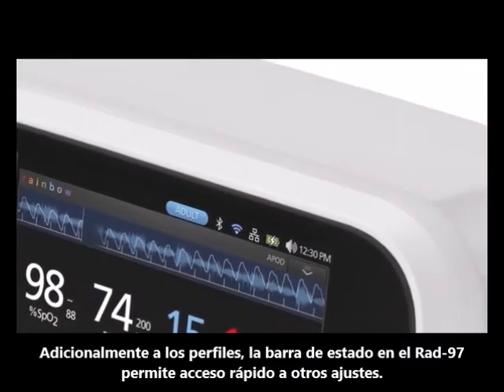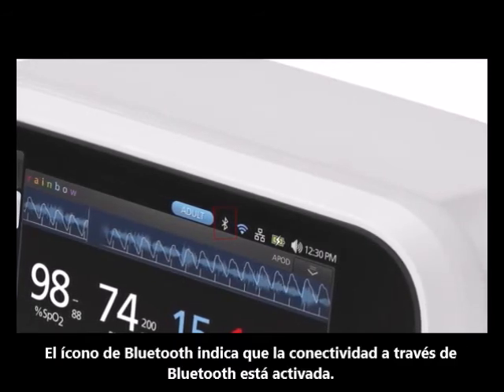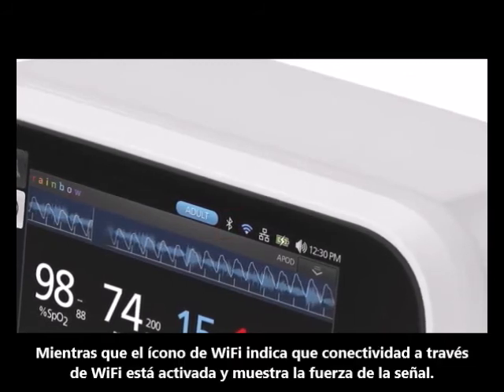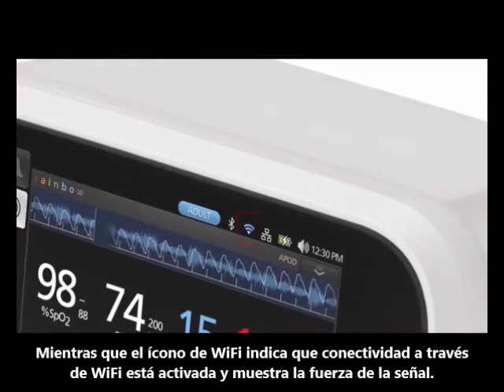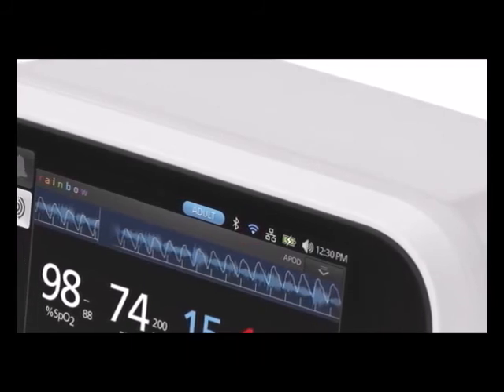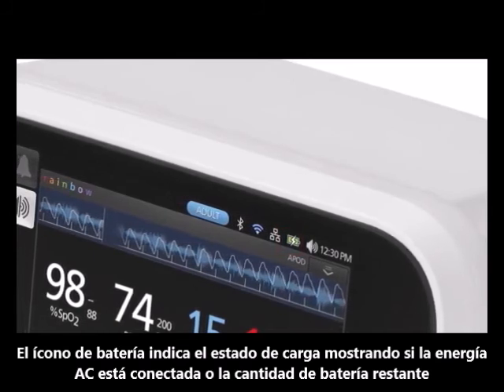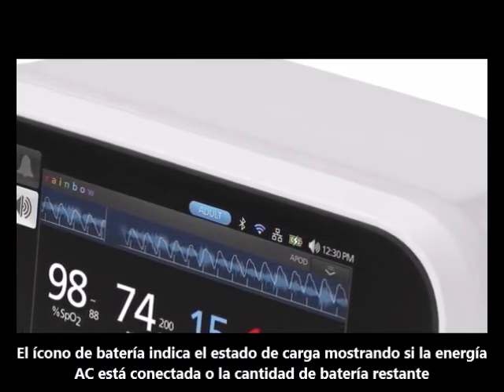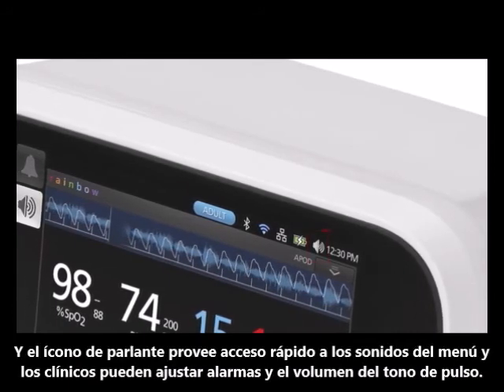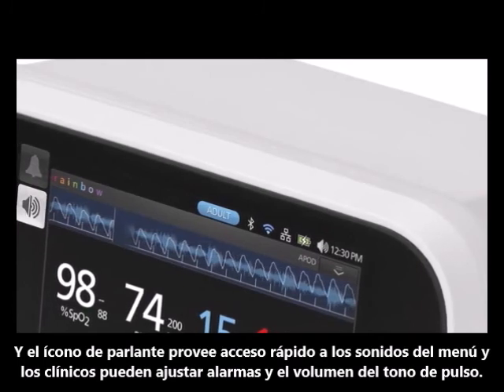In addition to profiles, the status bar on RAD97 allows quick access to other settings. The Bluetooth icon indicates that Bluetooth connectivity is enabled, while the Wi-Fi icon indicates that Wi-Fi connectivity is enabled and displays signal strength. The battery icon indicates charging status by showing if AC power is connected or the amount of battery life remaining. The speaker icon provides quick access to the sounds menu, where clinicians can adjust alarm and pulse tone volume.